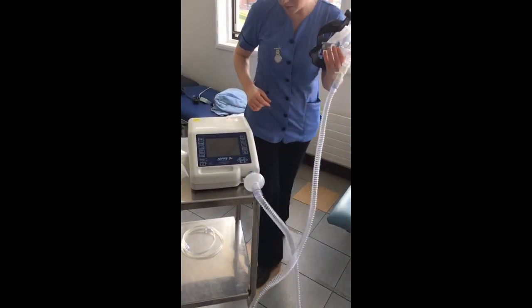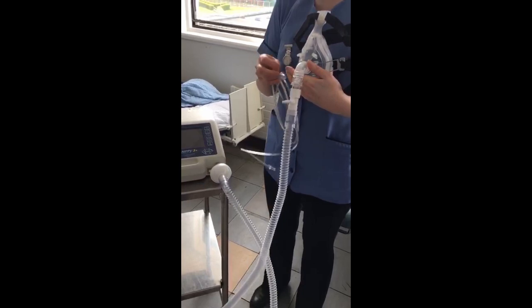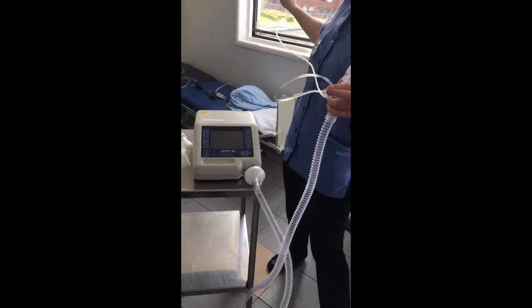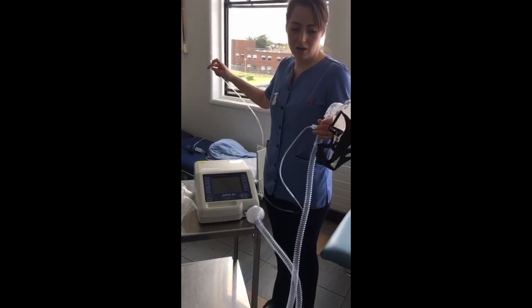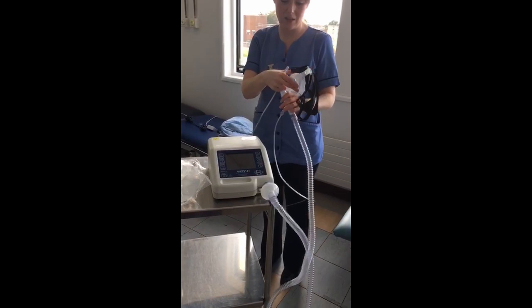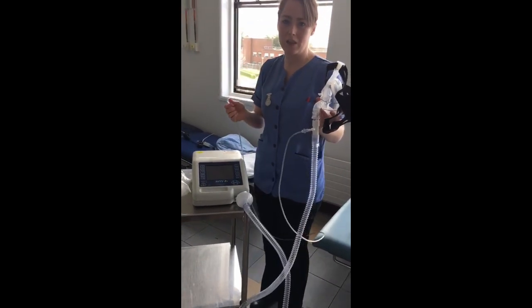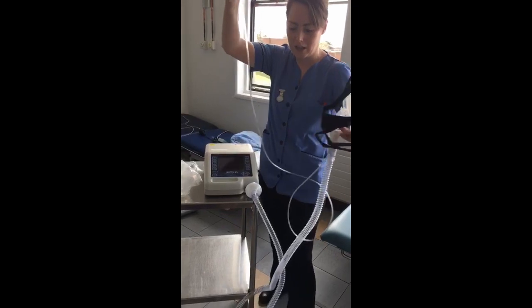If we need oxygen, we'll have oxygen tubing on every ward. This gets attached to our oxygen connector and we simply apply it to the flow meter on the wall. We titrate it up and down according to target saturations — we won't be instructed to give one or two litres; we'll be instructed to target a certain saturation range and adjust oxygen accordingly to the patient and clinical setting.